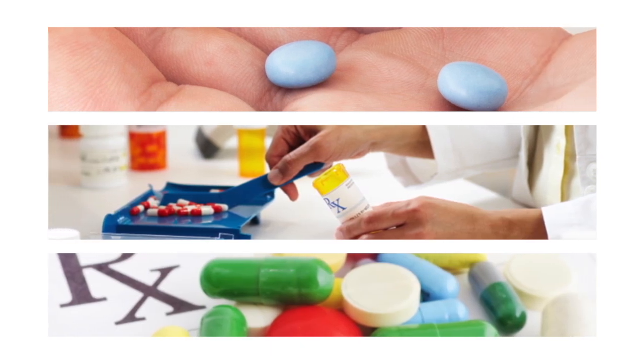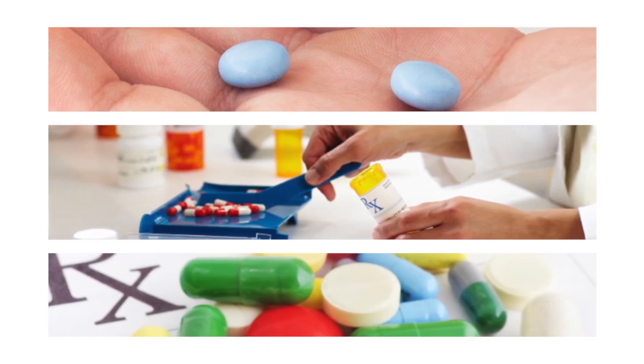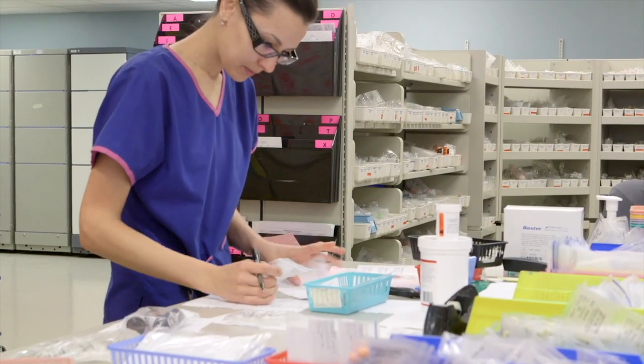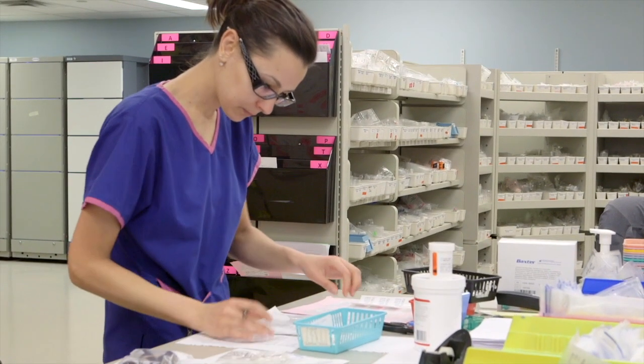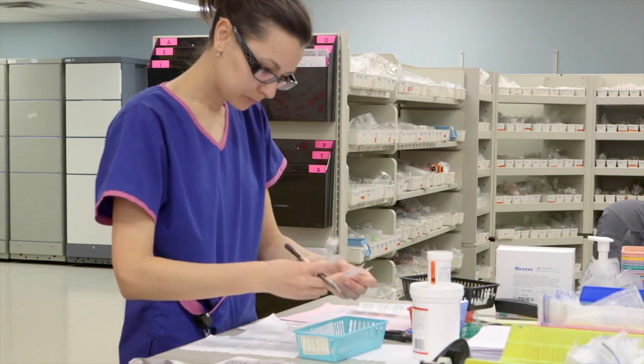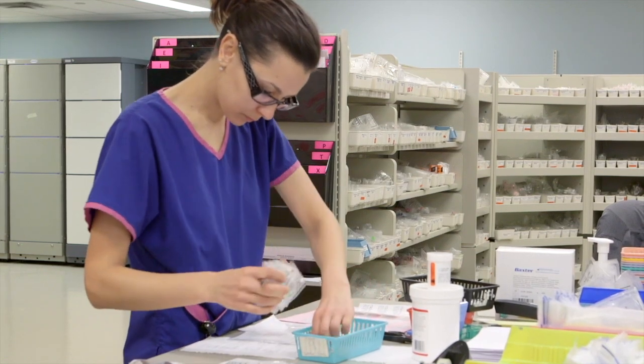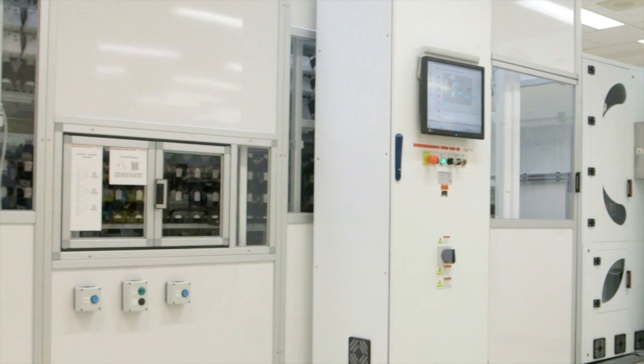Human error is the single biggest contributor to medication errors in hospitals. Medications are handled more than 10 times before reaching patients, and the opportunity for error increases with each human touch. Swiss Log healthcare automation is changing the way you work.